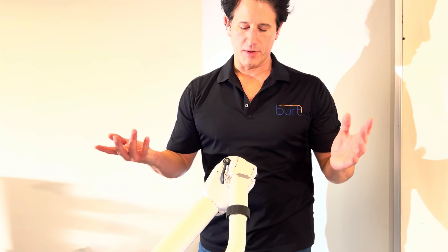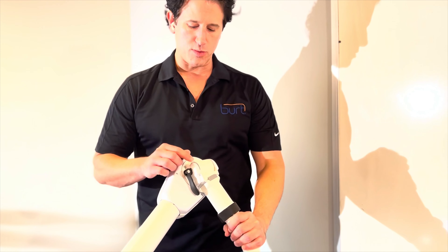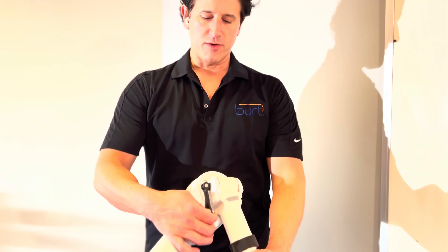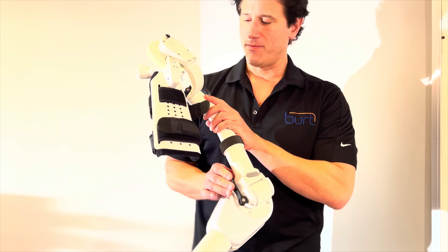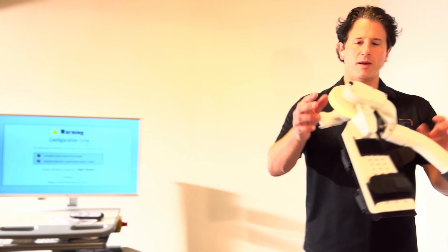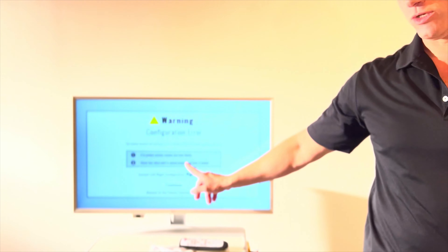Often this is where people get messed up. They try to twist it and they get confused. Really what you need to do is more drastic. You have to pull up the lever here and flip this over — you essentially have to dislocate the elbow, however you want to think of it. And you know you're doing something right because this will turn yellow, this will freeze up, and you'll get an error message on the screen.